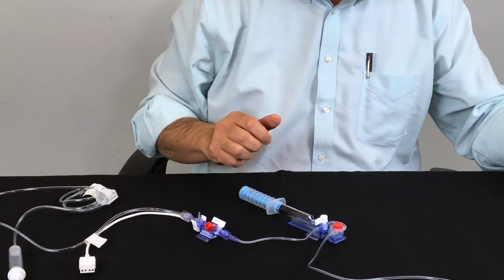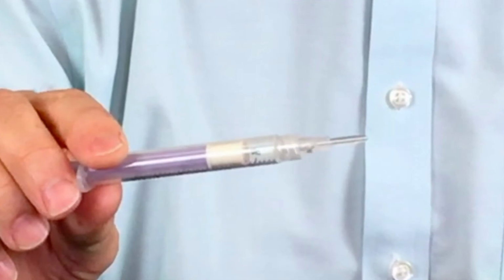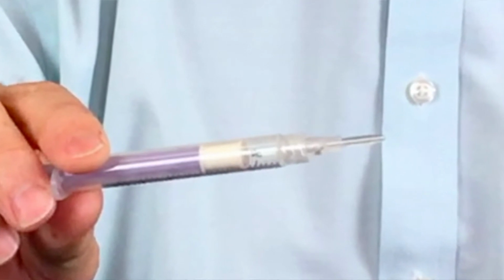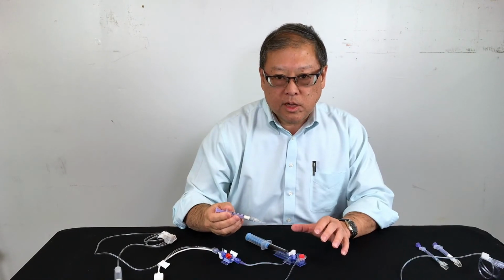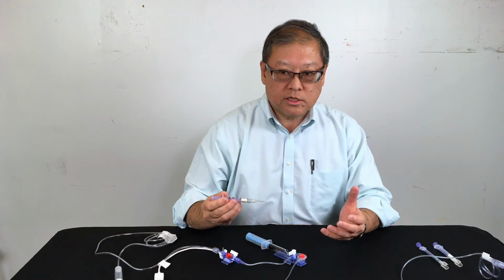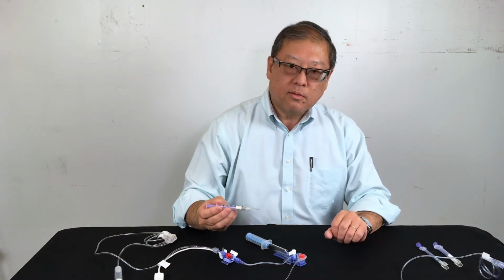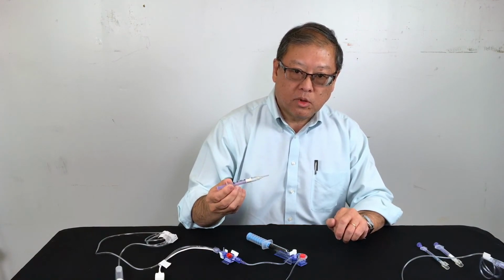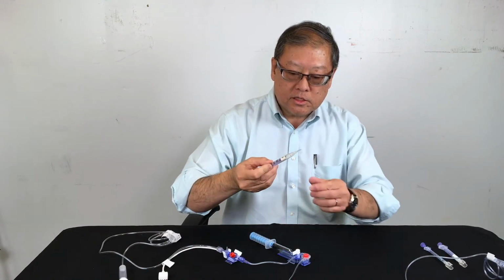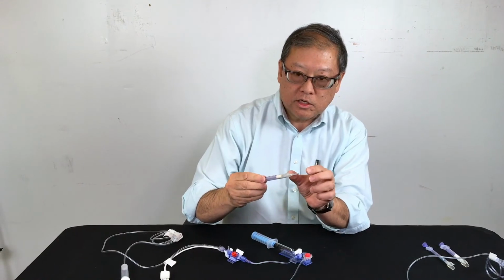then you would take a syringe, which would involve the use of a blunt cannula, because this is no longer a system that uses a regular stopcock system. This is a closed system. So there are various types of valve mechanisms that are used, but they're all accessed by using a blunt cannula. This particular blunt cannula does not have an outside collar or shroud to it. It's just got a blunt tip to it.